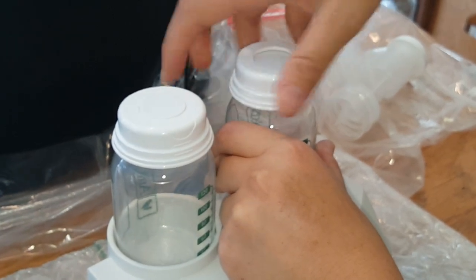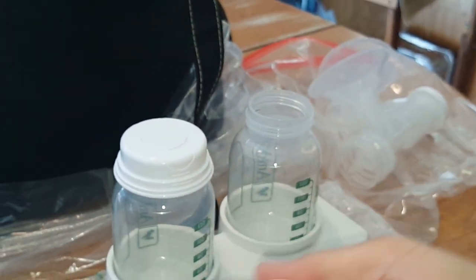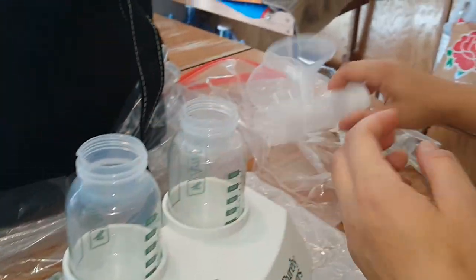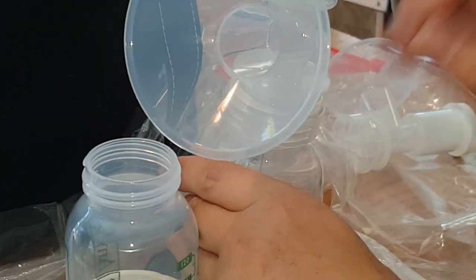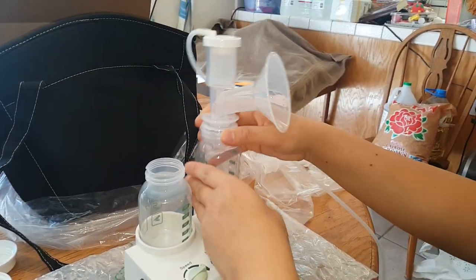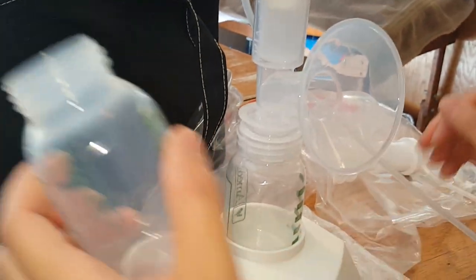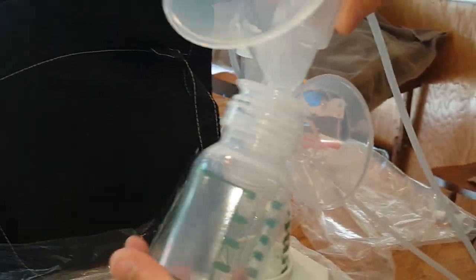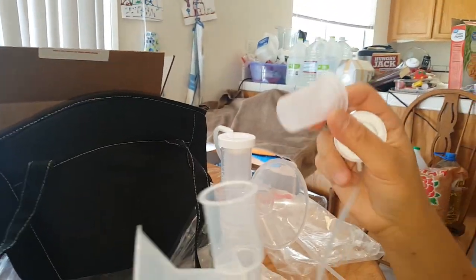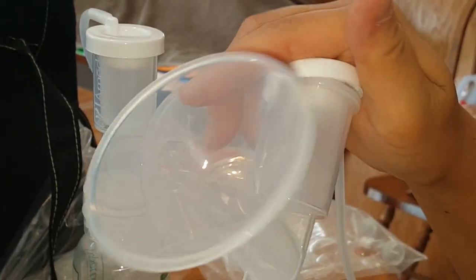So I'm going to show you how you hook this up. You just twist this, set it right there, twist this side. I didn't show you this part yet, but you'll get to see what happens to these when I turn it on.